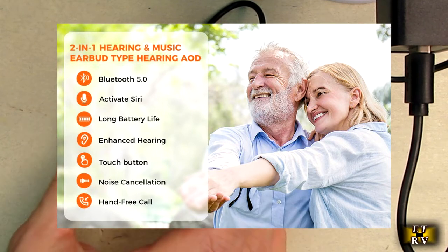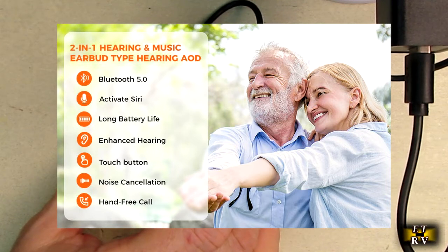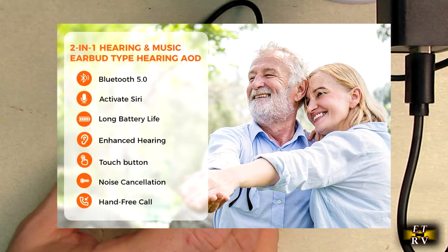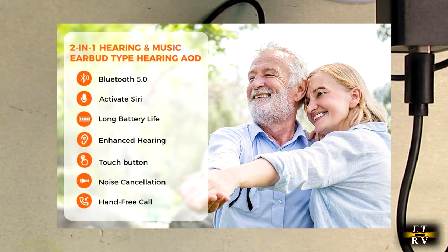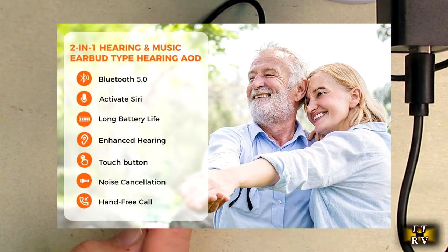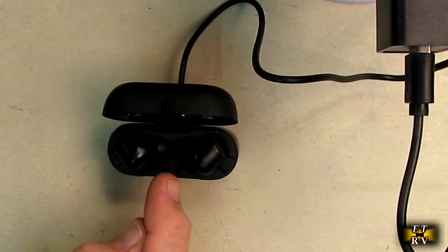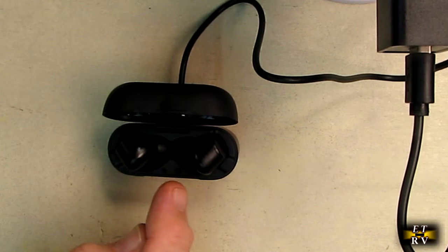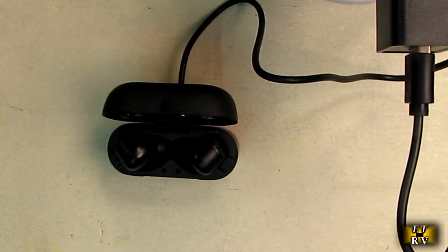Inside here, these utilize a multi-channel WDRC where acoustic signals are split up into several frequency channels to improve sound quality and signal-to-noise ratio. This is more advanced technology found in more advanced hearing aids. There's a hearing enhancement mode and Bluetooth mode, and you can switch to meet different environments.